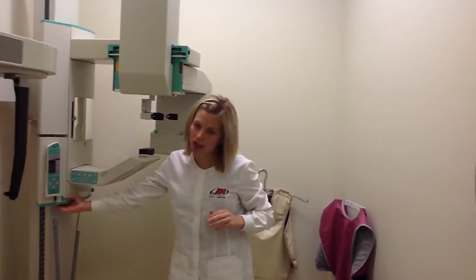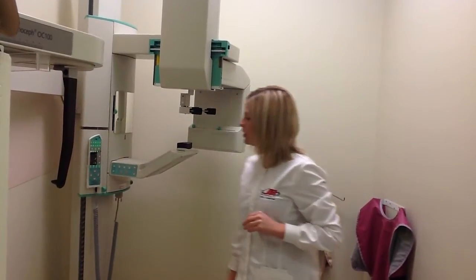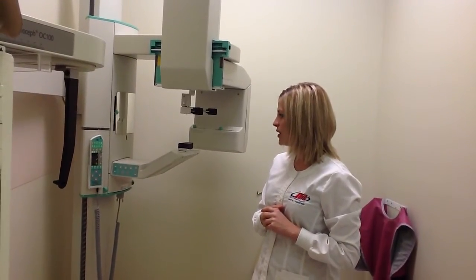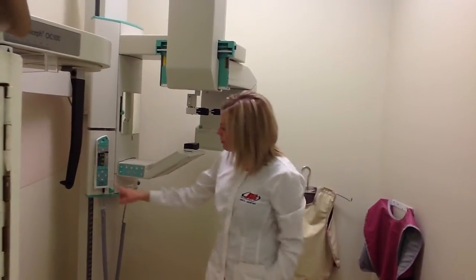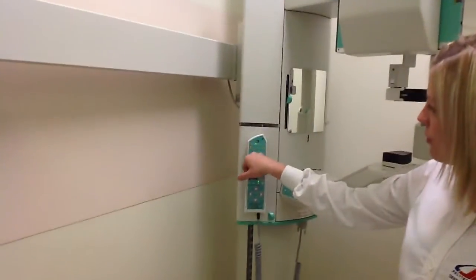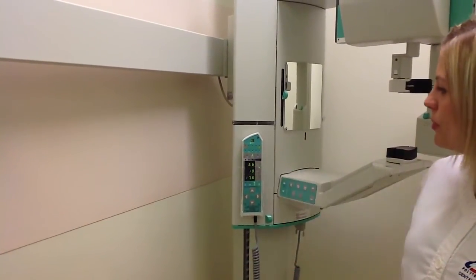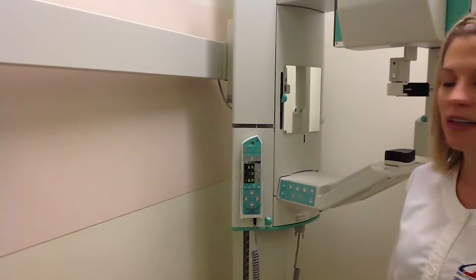We could turn on the power, and that power switch is underneath here. We switch it on and we give it a minute to activate. Once you hear a beep, then you could actually set the required settings. So to review the settings here, we have the first area on top, they're asking us what type of image we want. We will be using the number 1 being adult and number 2 being a child.